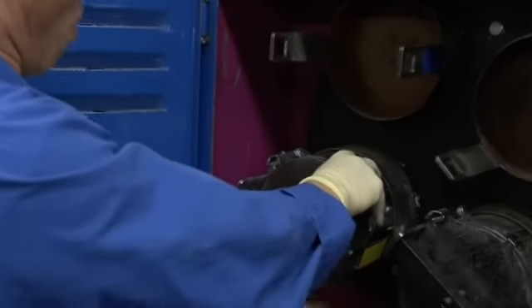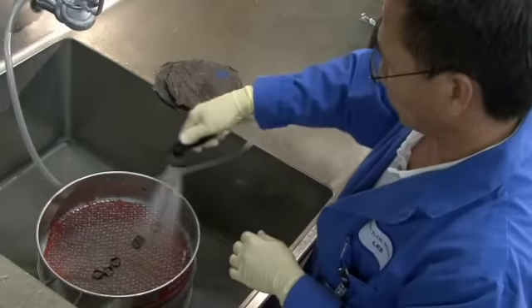Next, a mechanical polishing operation removes any slight surface imperfections and provides the final finish for which St. Jude Medical mechanical heart valves are so well known.